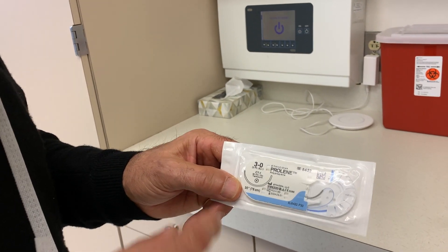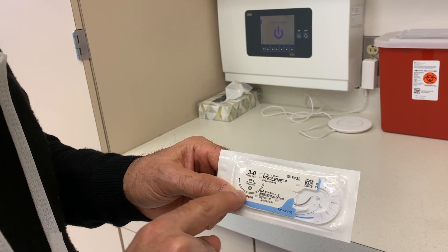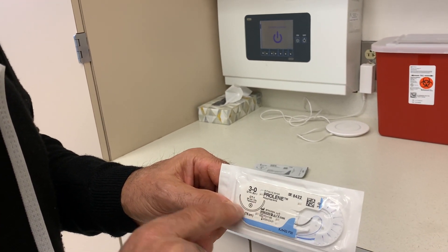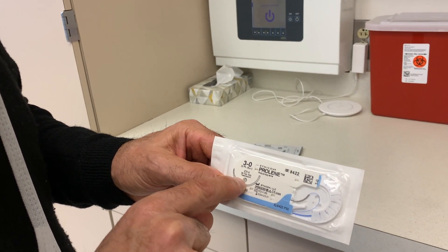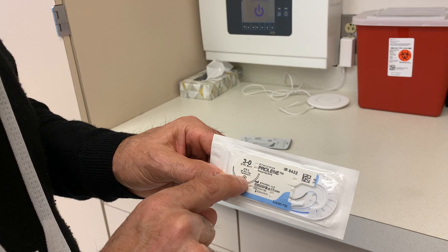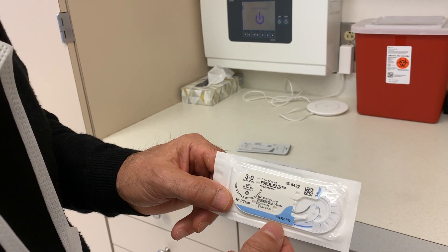We should know by the brand the type of suture — whether it's absorbable or not — and then here's a diagram of the needle. This is going to be a half circle, and here is a cross section of the needle showing us that it's got a pointy tip but it's round, so it's tapered.